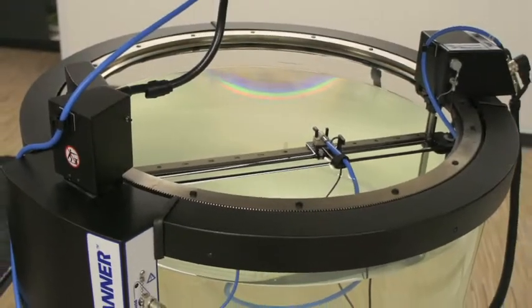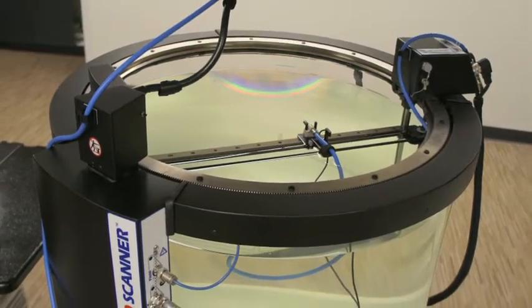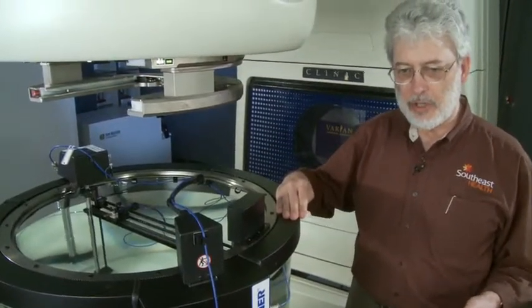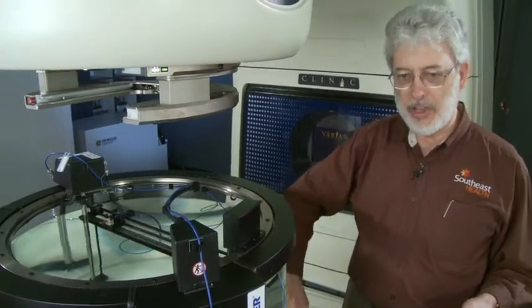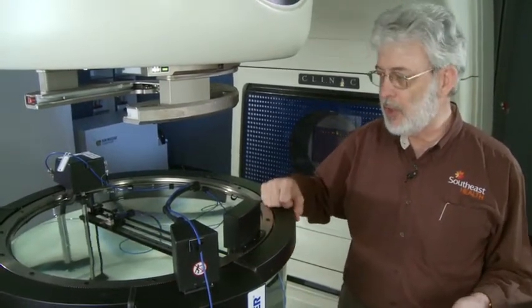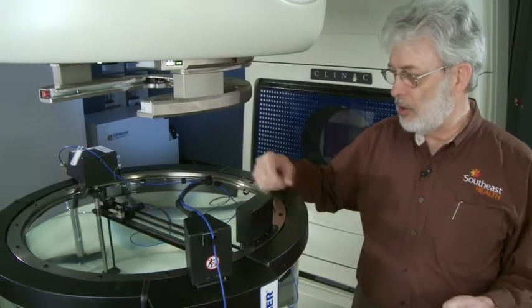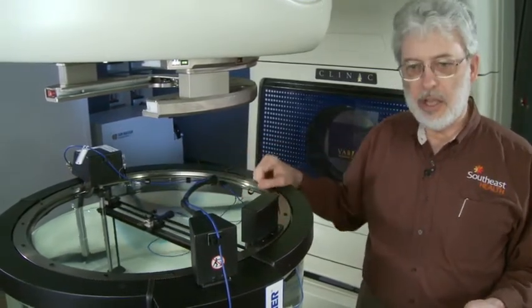Let me tell you the advantages of this innovative cylindrical design. It minimizes the volume and weight of water that you have to deal with because you don't have corners of the phantom that you have to fill with water but yet it still has the capability of scanning a diagonal of a 40 by 40 field size.